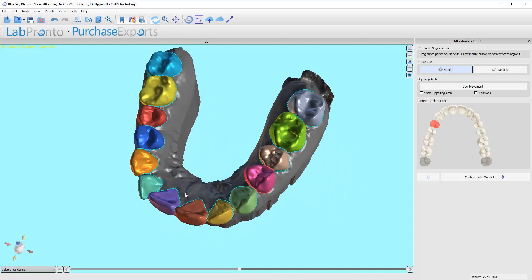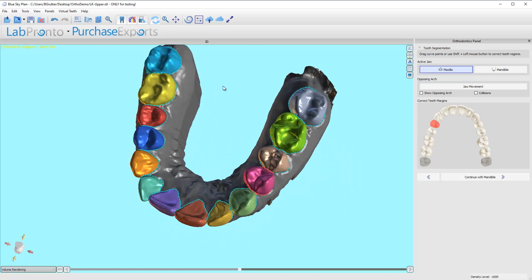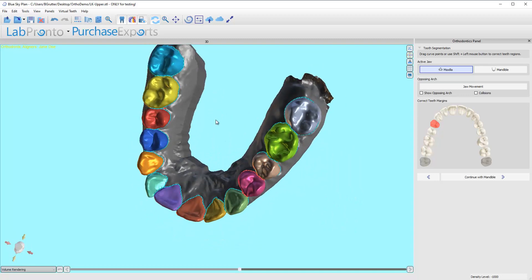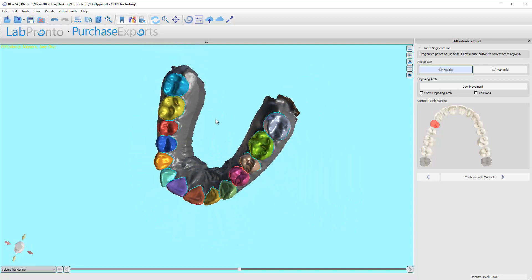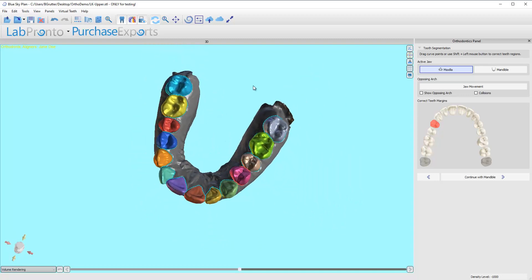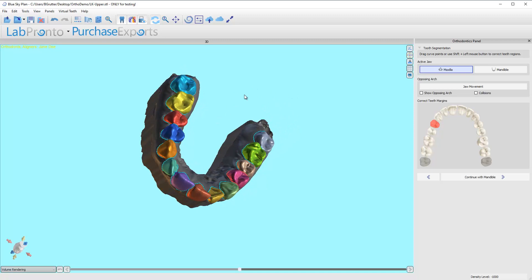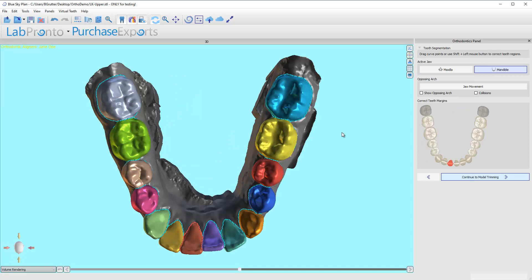So just make sure that's about the area that's more, if there's an area that's frequent that would be it, but it's still infrequent. Most of the time, I just see the proposal and click forward. So I'm going to click to continue with Mandible and let's see how good of a job it did there.